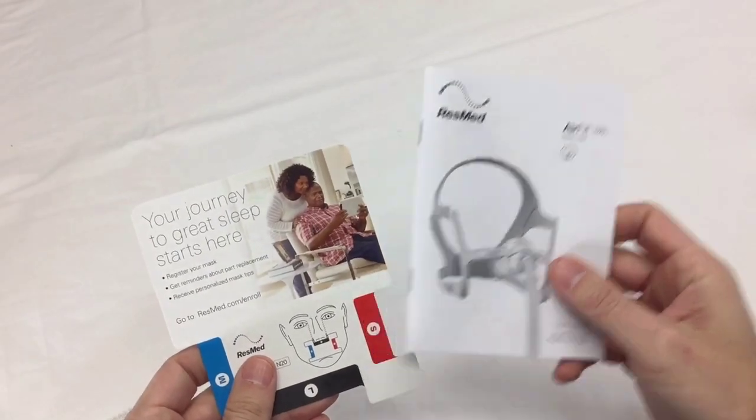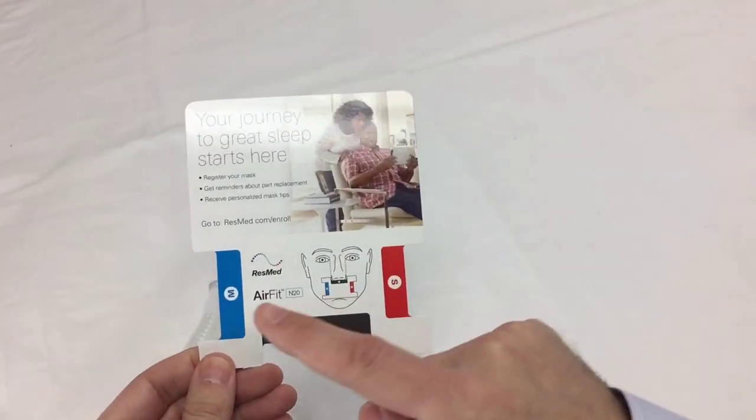And here we get the user manual with it also, and also a sizing template with the cutouts for the small, medium, and large.